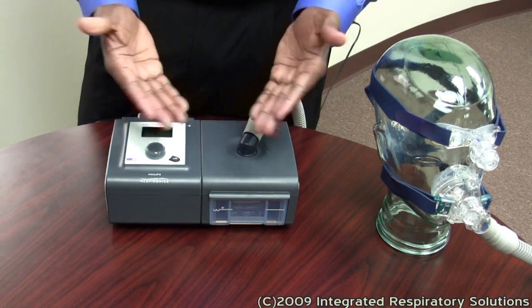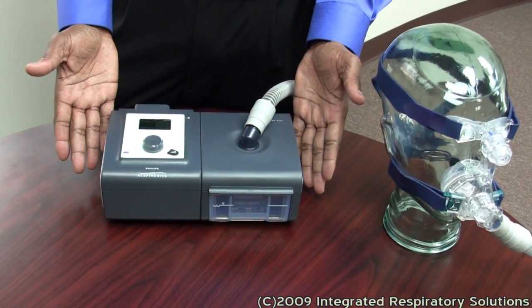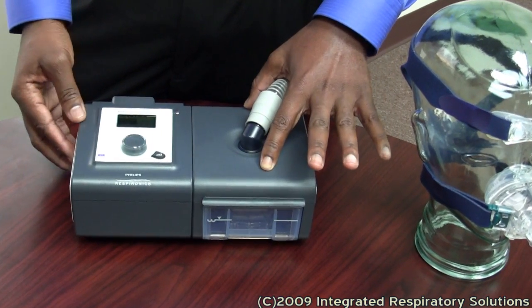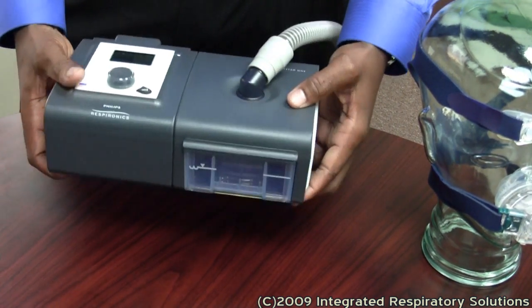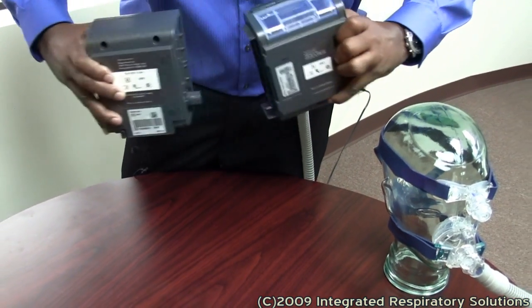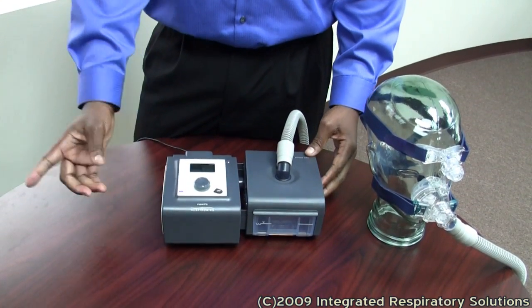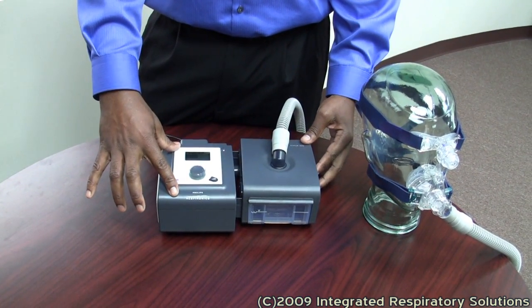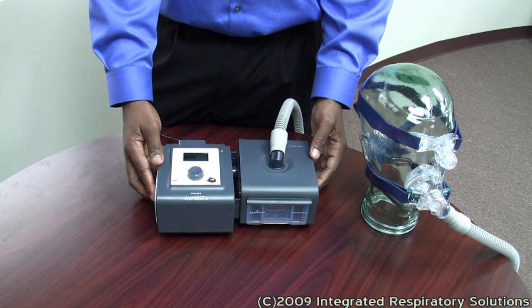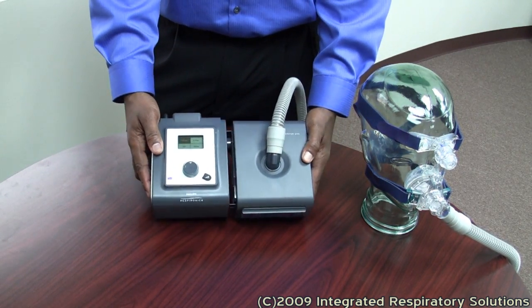This is a CPAP device. Most CPAP devices come with a humidifier — that's this section of the equipment. It's actually two pieces together. This manufacturer separates theirs by the release latch at the bottom. This is the actual CPAP unit. Most doctors will script your CPAP order with humidity, so we must integrate these two.